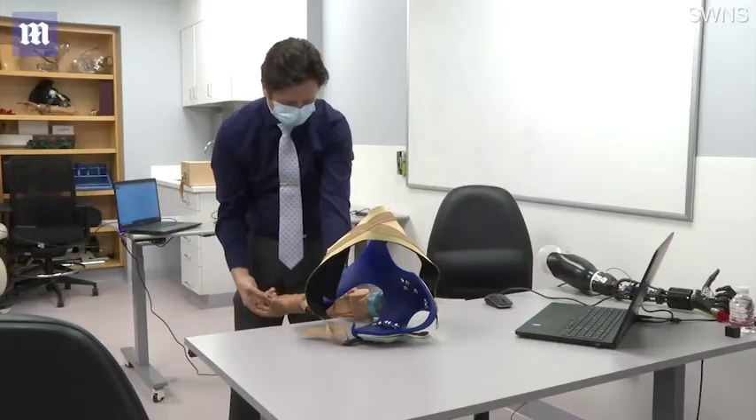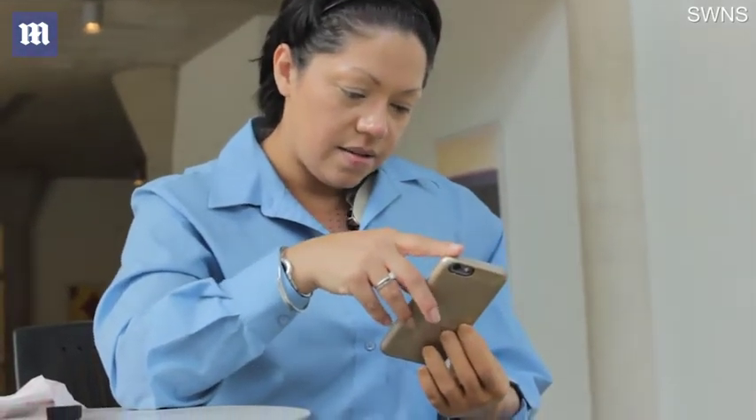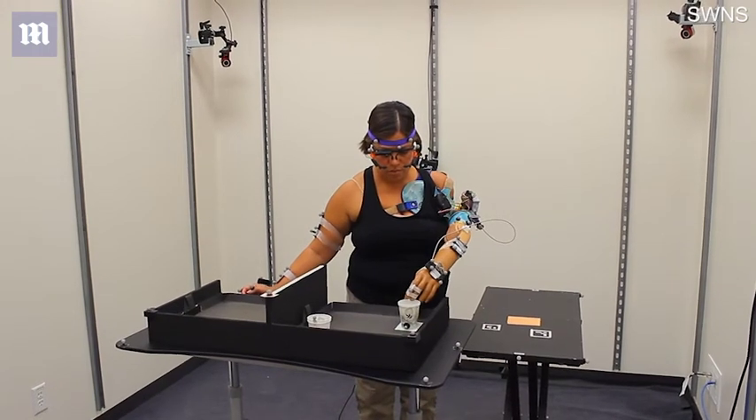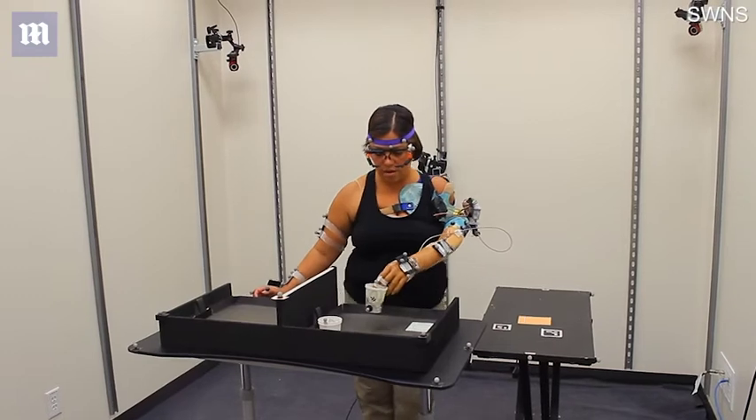Like when I lean this back, it's touching my finger — yeah, I can actually tell that it's doing that. Can you adjust your arm right now? Yeah, it's a good time. I'm going to kind of see what happens when I get to my second one.